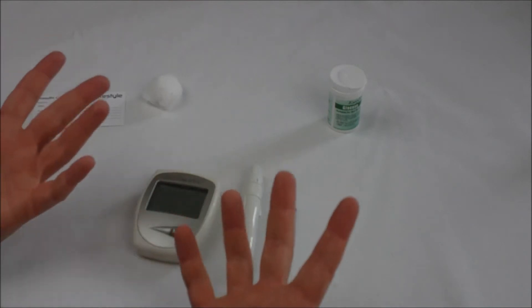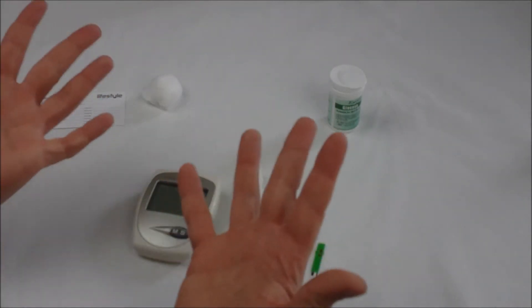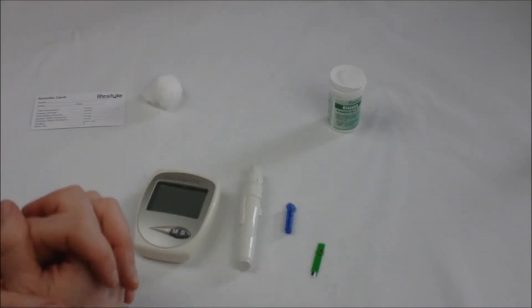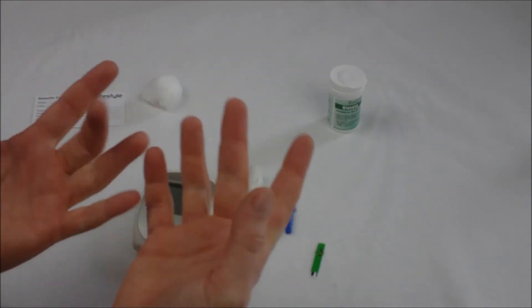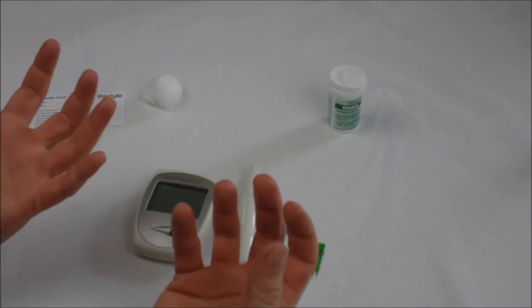At this point it's a good idea to wash your hands with nice warm soapy water. This will minimize the risk of infection and also will help raise the blood vessels to the surface of your fingers so that you get a nice blood supply when you prick your finger.